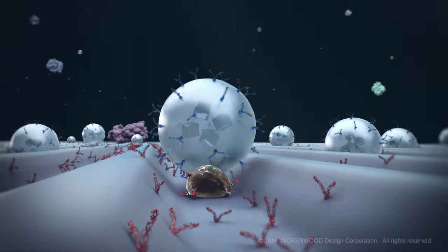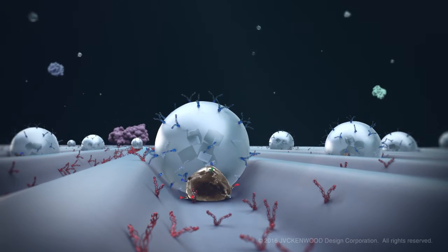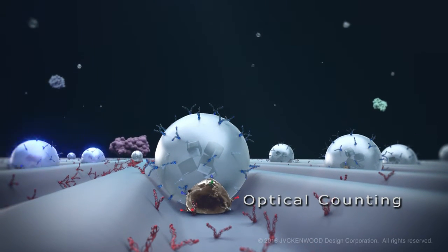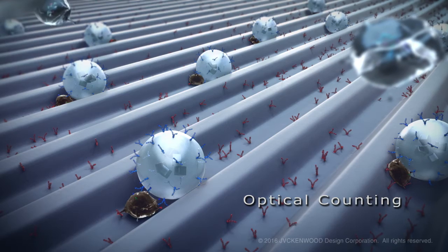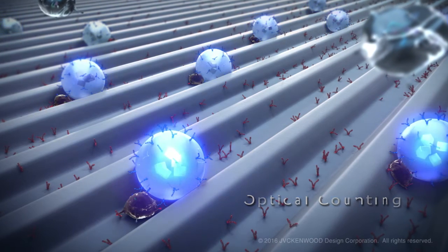The number of exosome-nanobead complexes is counted by applying JVC Kenwood's optical disc technologies.